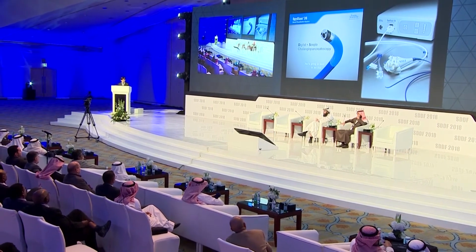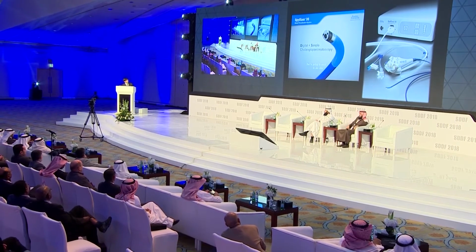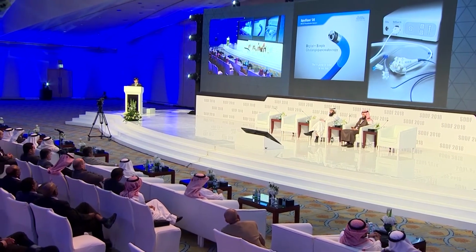Our institution acquired a unit of the digital SpyGlass a few years ago, and we were told that we were the first group in Asia to acquire such a unit. This is an interesting device. You can see at the tip of the scope you have two CCDs. It's really a plug-and-play device, and it auto-focuses itself. And there are a number of very nice features, including an aspiration channel. So it is an improvement from the older version of the SpyGlass.